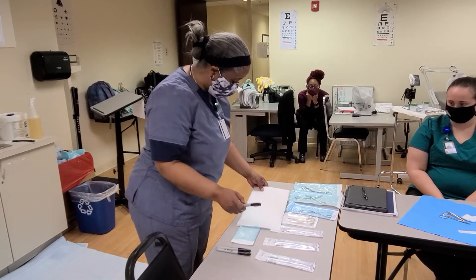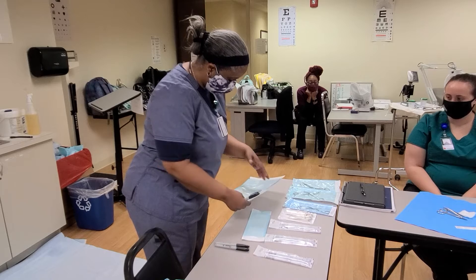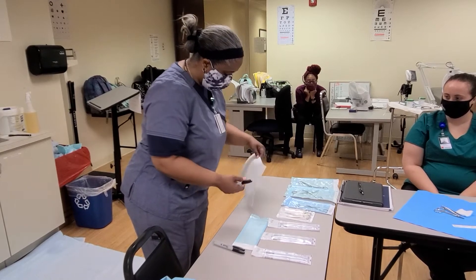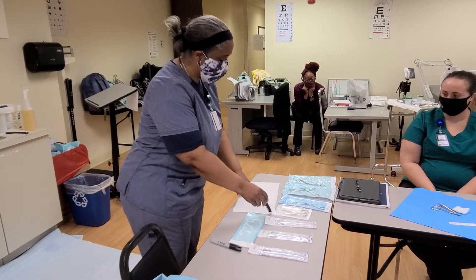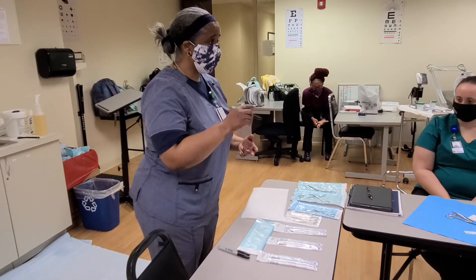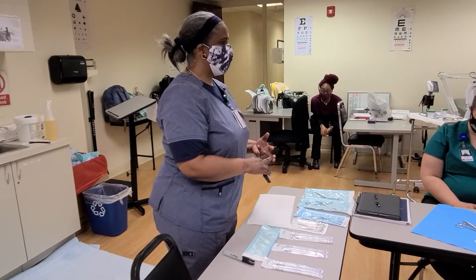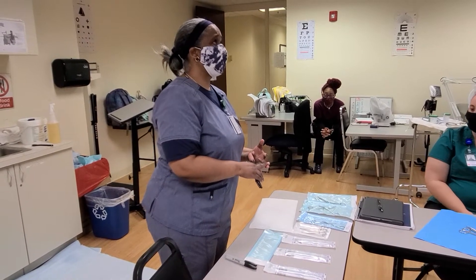What you have to do on the back — and I'll show you how to put the instruments in in a moment — is at the top you put your initials, just your initials. And for the expiration date you put EXP, then the date. So today is May 19th, and counting six months forward — June, July — that puts us out to November.